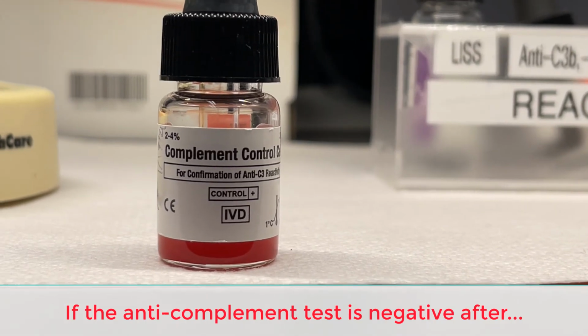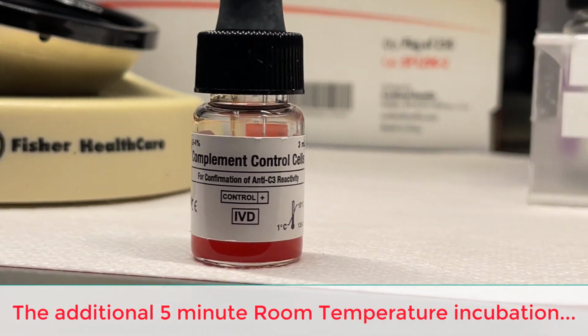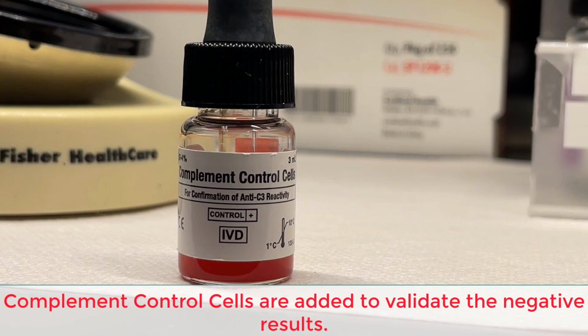Coombs or complement control cells must be added to the appropriate reagent tube to confirm a negative result.